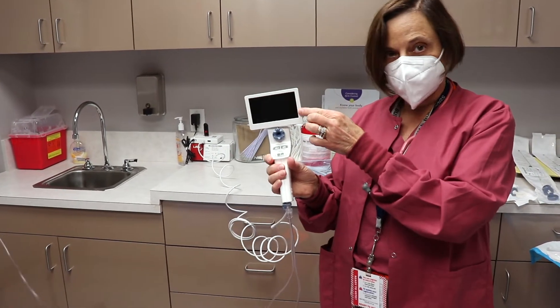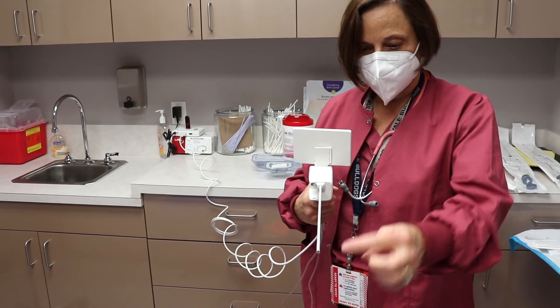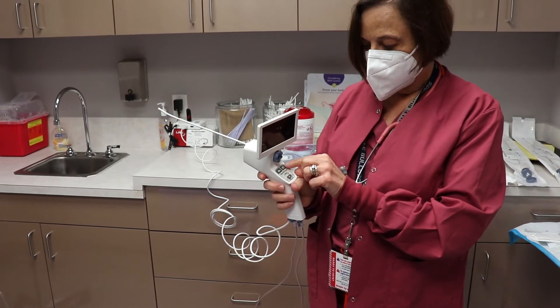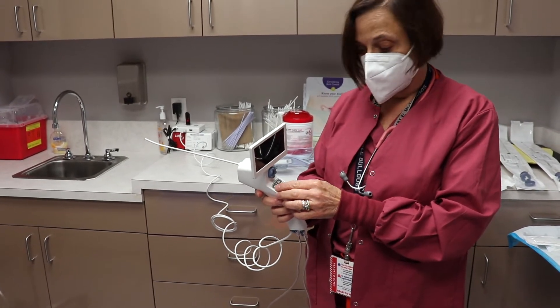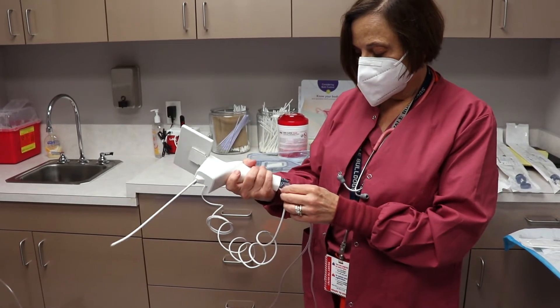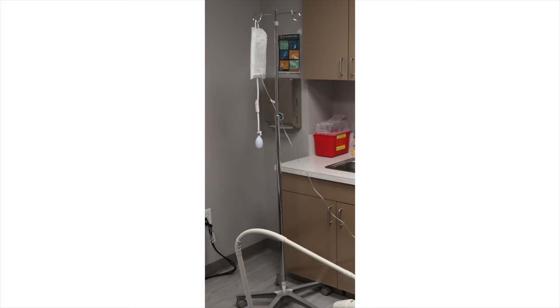There's a camera here, and there's a tube that goes into the uterus with a little light on the end. You can take a picture here and you can take a video here. There's an inflow line here and it's controlled with the stopcock, and an outflow line here.